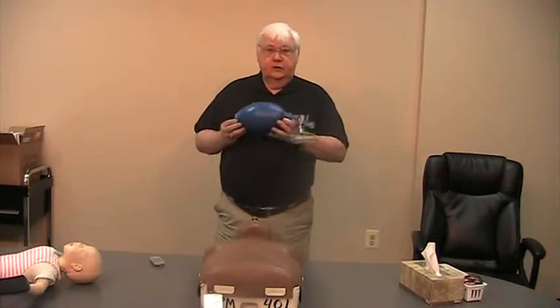Here I am again back with bag valve mask. For bag valve mask, you're always going to be in this position — directly over top the head of the patient. You cannot do a bag valve mask from the side of the patient; always directly over the head of the patient.